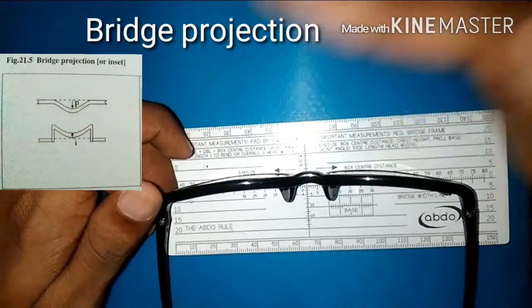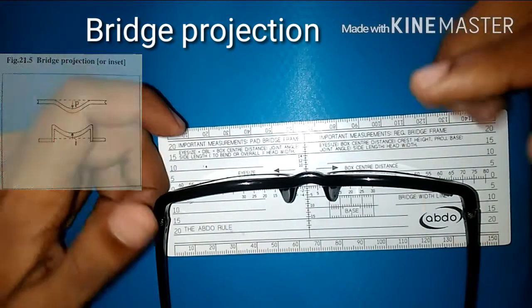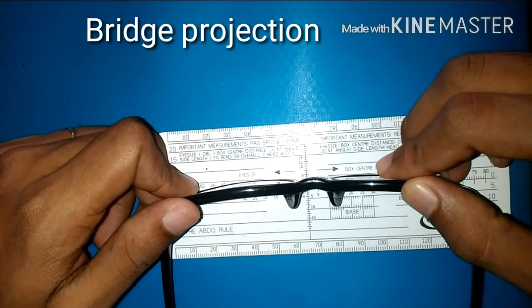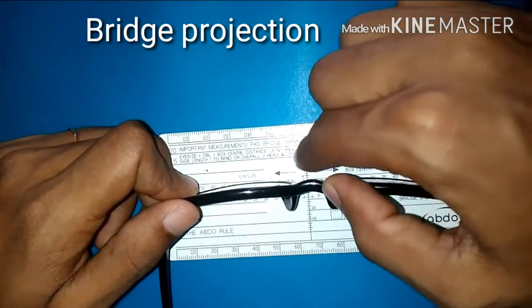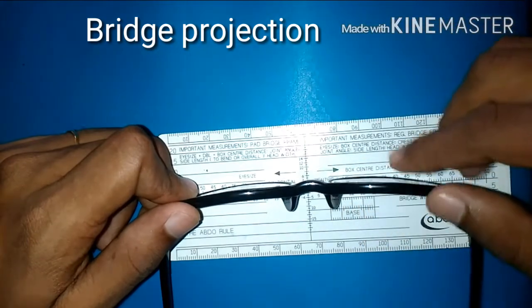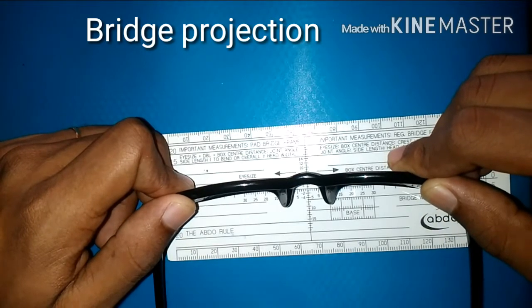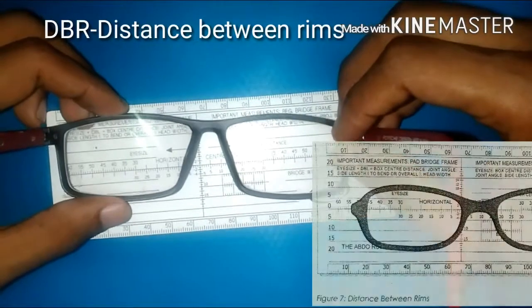Projection is how much the bridge projects outward compared to the front. To measure that, place the back surface of the front along the horizontal line and try to measure at what reading the projected area coincides. For this it's around 8mm.